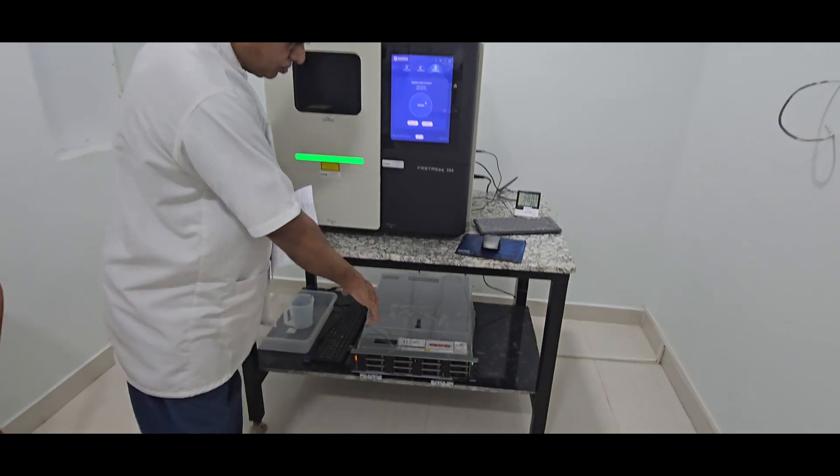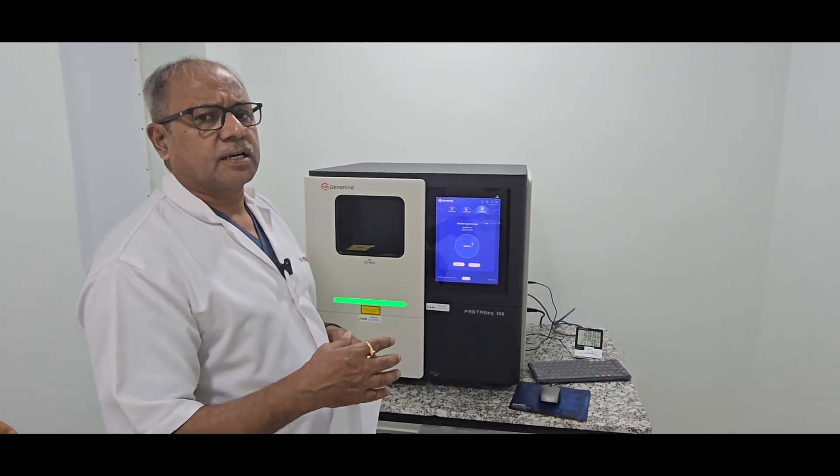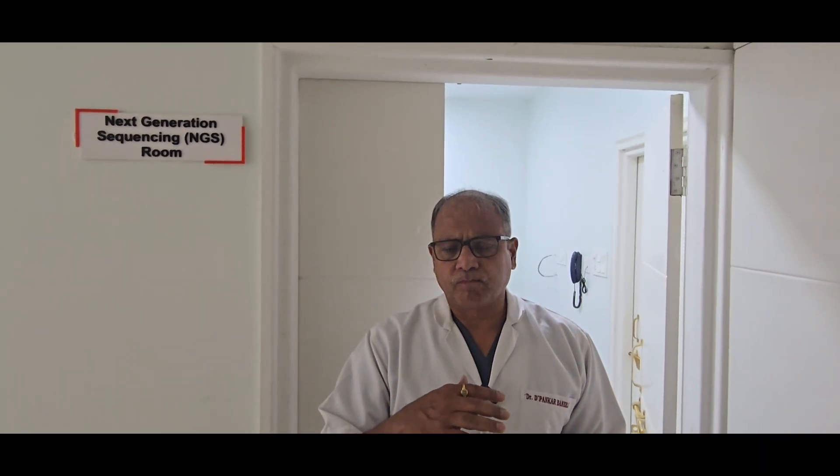We have our own server with us, so the bioinformatics system is in-house so that we can generate the report. The main important thing is that whenever we get infectious samples or genetic samples, everything is done here, so the turnaround time is very less — even within one day the infectious panel report is done. For exome sequencing and similar tests, the turnaround is also very short, three to four days depending upon the load on the machine, and with that, in Jabalpur, we can do a lot of reporting.